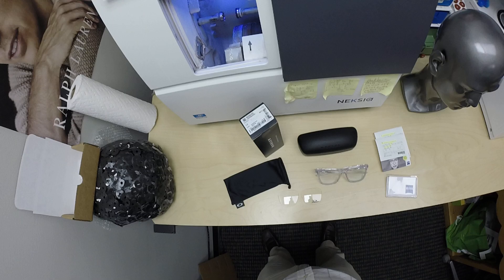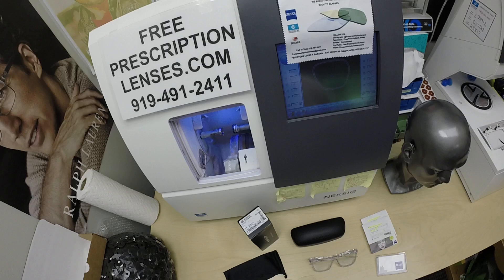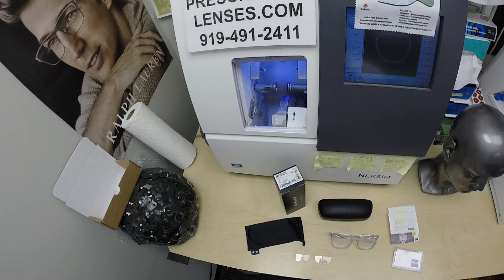Hello everyone, a special thank you to David in Brick, New Jersey. This is FreePrescriptionLenses.com, where everyone loves a bargain and no one is disappointed with quality. I am the hardest working optician in the industry. My name is Seymore Better, but call me Mo Better — because I'm gonna have you see a mo better look.